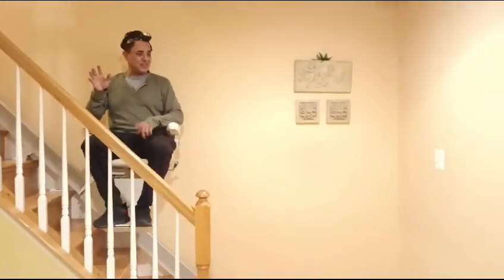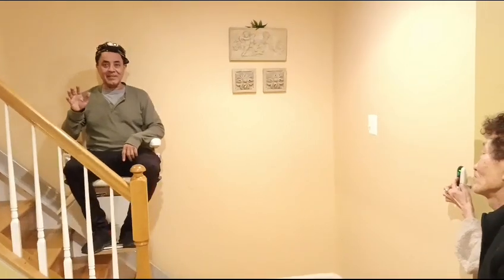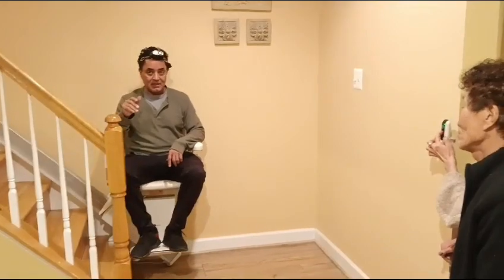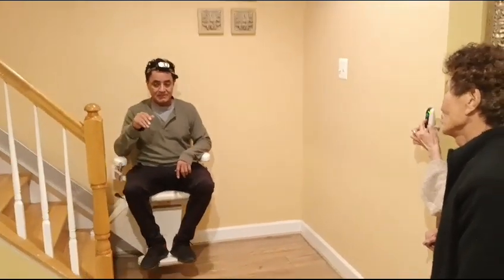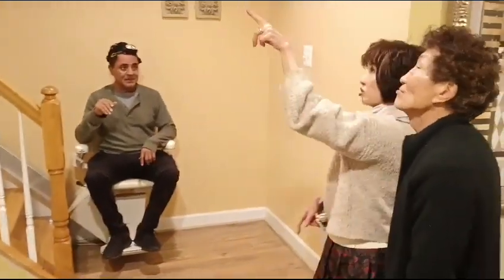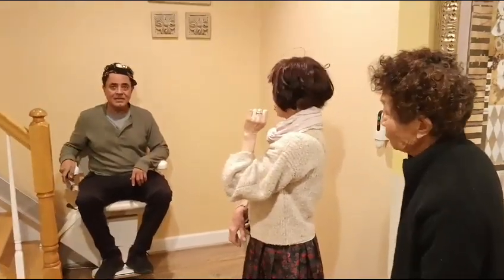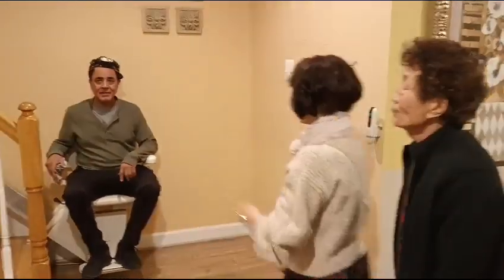We always do first tries. Safety. How's the joint? You didn't feel it? Can you feel it? You want me to check it again? No. If you didn't notice it, then it's good. I didn't notice it. Alright. But when you tense the chair, go up a little bit. Let's do it. Thank you.